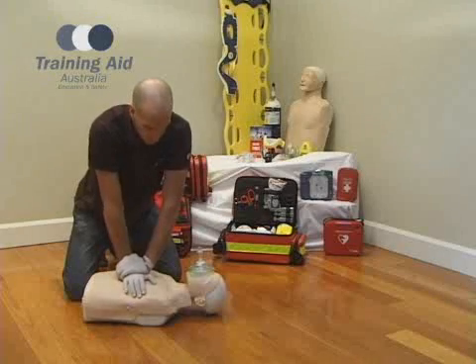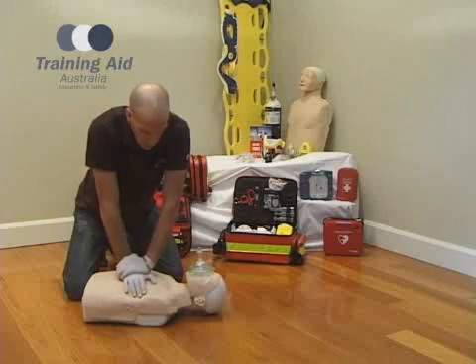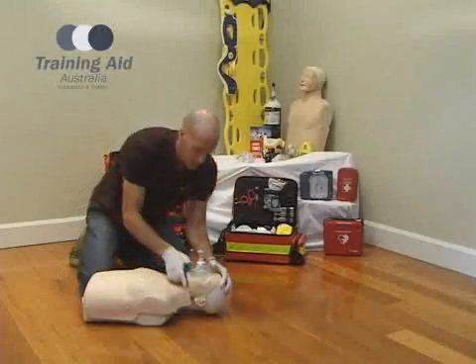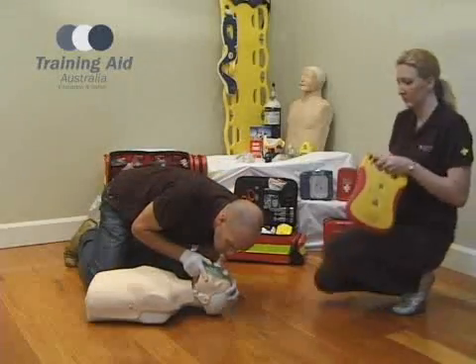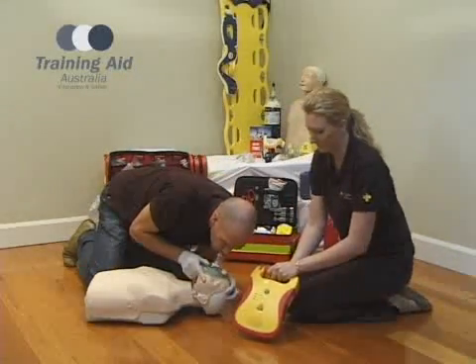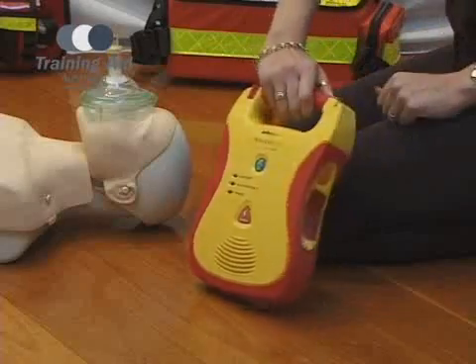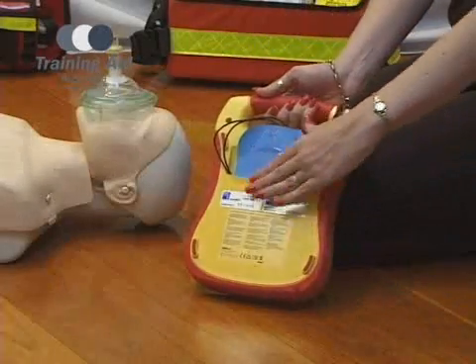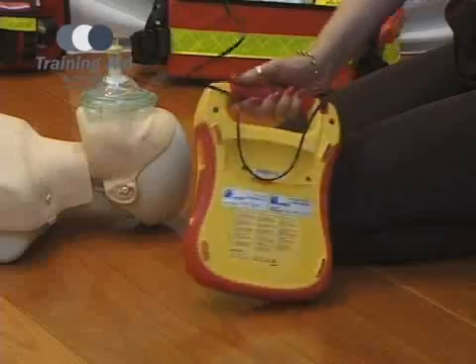The use of an AED — automated external defibrillator — can save lives of patients suffering sudden cardiac arrest by delivering an electrical shock to the heart, allowing the normal heart rhythm to be restored.